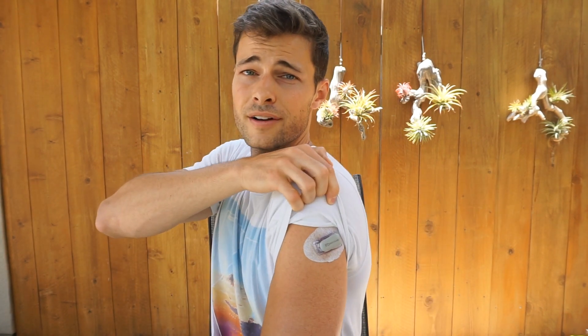I'm going to read to you guys off of Dexcom's site what we can expect — what are the differences between the G5 and the G6? As you can see here, I've got the G5 on my arm still. It is still active, but I'll be switching that out shortly.